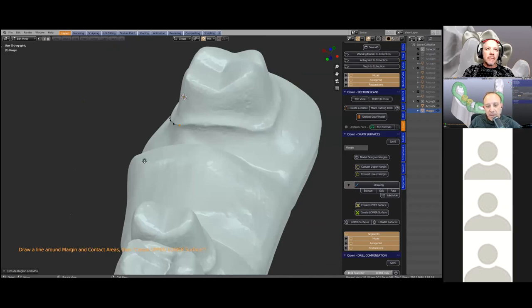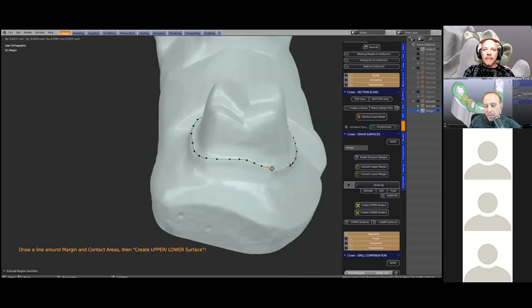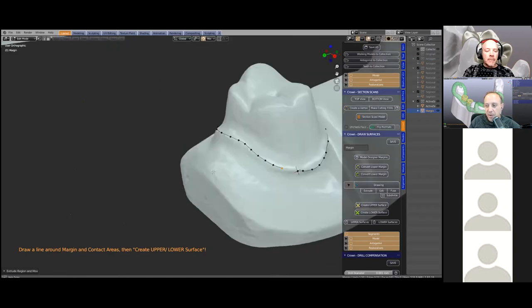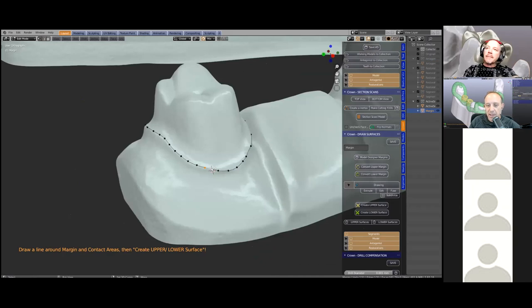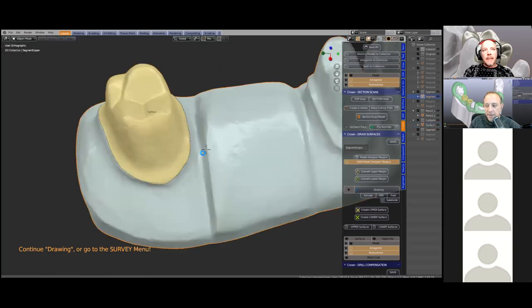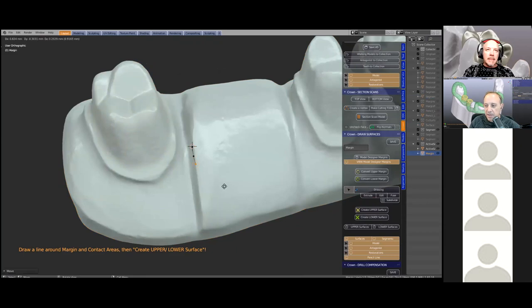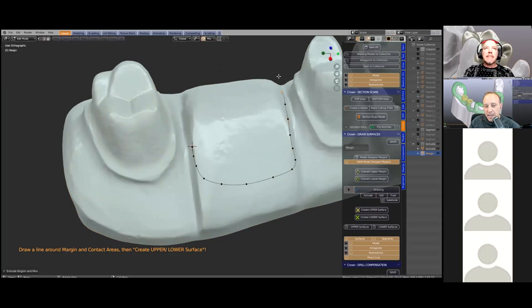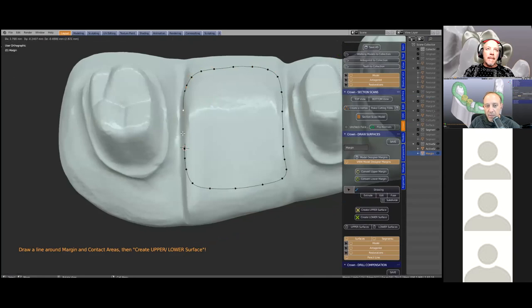What Michael's doing now is outlining the margin. A lot of the work is color coded — earlier the working model was whitish and now it's a green shade. That tells you this is now what we call a segment model, which is the model we use for outlining the margin. When that's done it creates a yellow surface — color coded: for the upper jaw it's yellow, for the lower jaw surfaces they are all green. Here Michael's going to outline the pontic area — the gum-touching part.